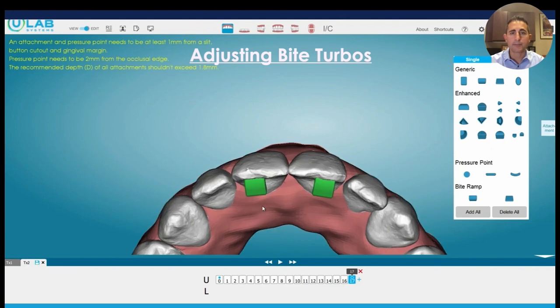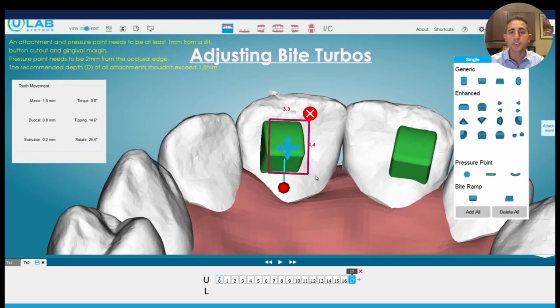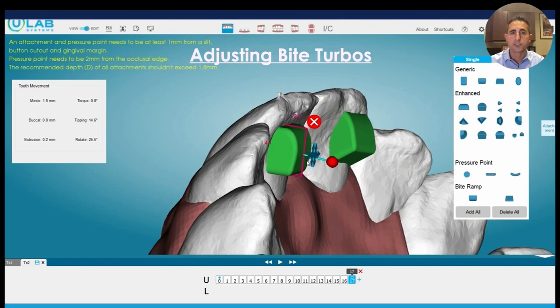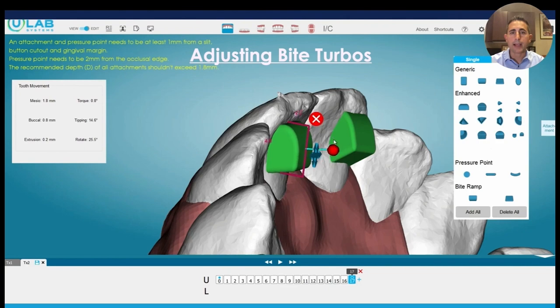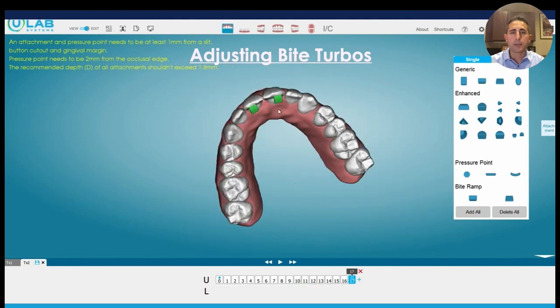I don't have to rescan the teeth and place the bite turbo somewhere else. One option is I can just go into the software and actually adjust that bite turbo itself before I order additional chairside refinement aligners. I can drag it out further, make it bigger, put it back, and then check my occlusion — is it in occlusion now? If it is, great, we can move on that way.